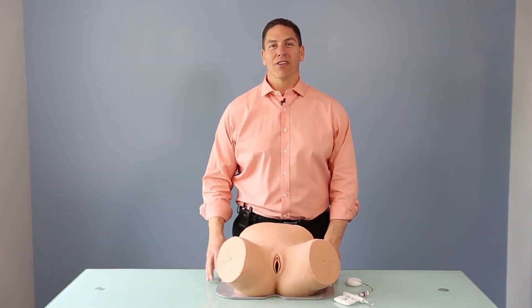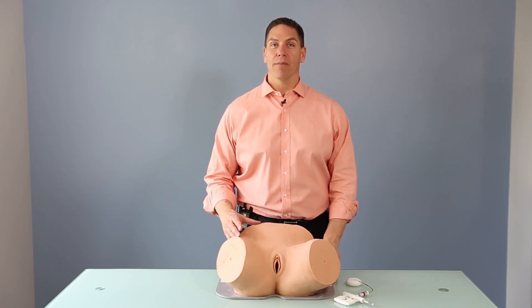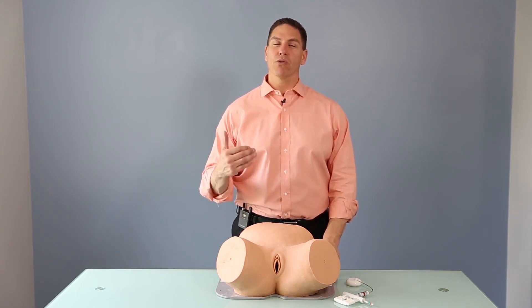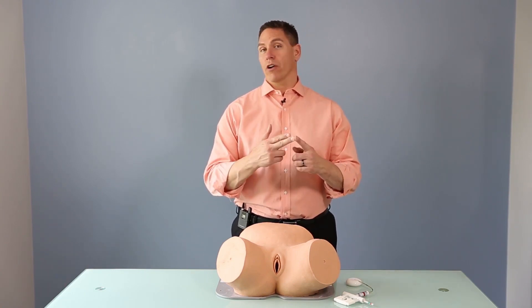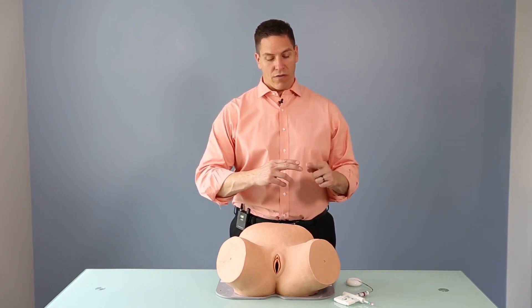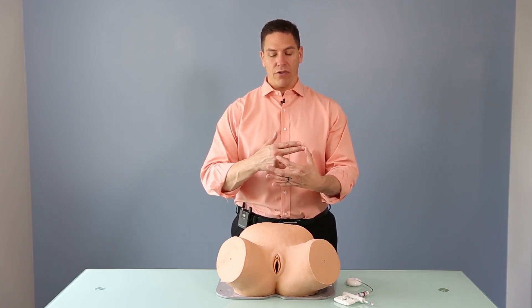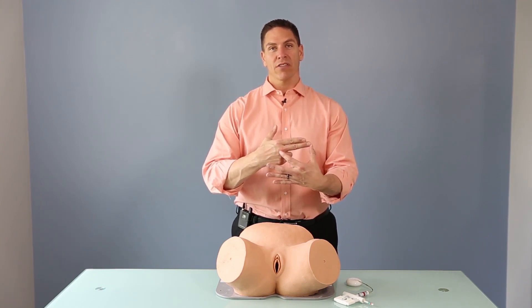To demonstrate the best practice of consistently getting your cup on the flexion point every single time, it's important to understand what Dr. Aldo Vacca was talking about when he emphasized measuring the distance from the posterior fourchette to the flexion point. We all have a natural ruler on our hand: the distance from the middle finger to the interphalangeal joint is between five and six centimeters, and to the metacarpal joint is between 10 and 11 centimeters.